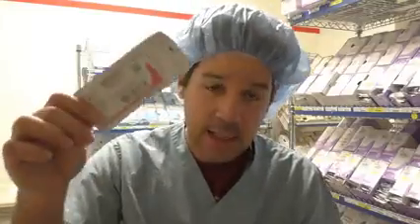Now, if you're doing any type of big open general case, like a big open laparotomy or something like that, you will see this used. This is used to close up that peritoneum, rectus, Scarpa's fascia, all that stuff, all in one big bite. They use this big TP1 tapered needle on a #1 PDS, and you will see that used for primary closure of that peritoneal space. General.